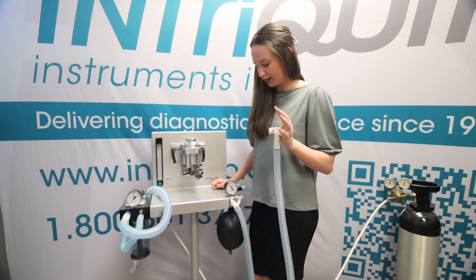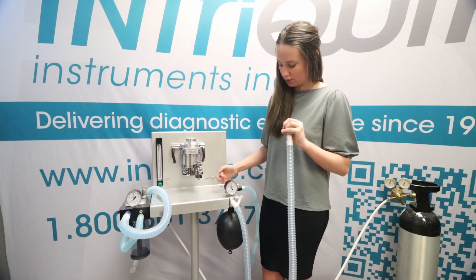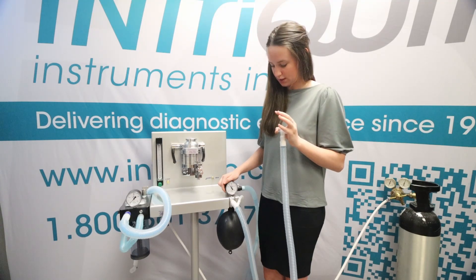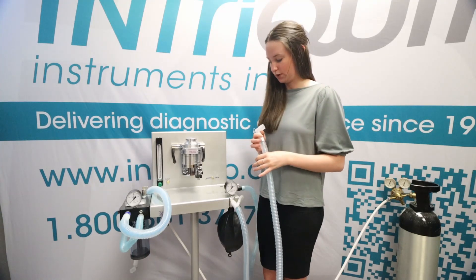Now keep an eye on the gauge as it goes up to 15. You're going to continue blocking the end of the hose and hold it for 15 to 20 seconds, making sure that the pressure is not going down — because if it's going down, you know that you have a leak somewhere. Ours is staying pretty steady. We know that our system is working fine.